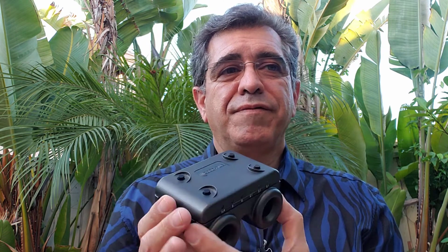Hi everyone. This video is for those who want to learn or review how to examine pupil reactions using the APD tester. Those viewing this video could be optometrists, ophthalmologists, ophthalmic technicians, or students. I will try to make it in a way so hopefully everyone can follow along.